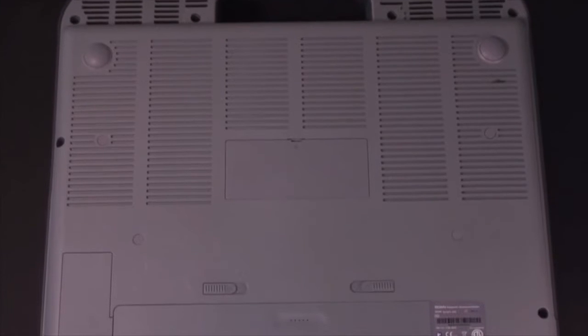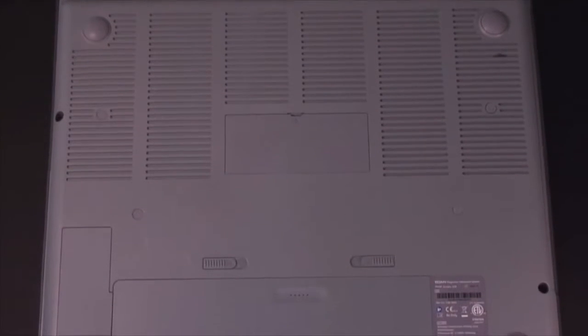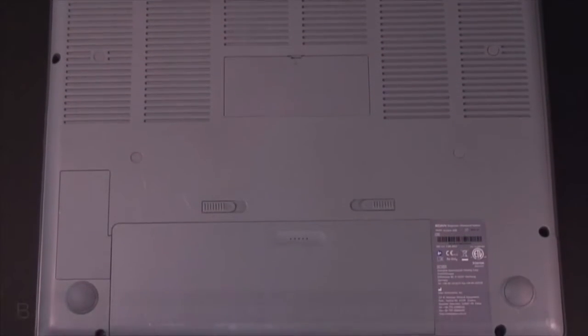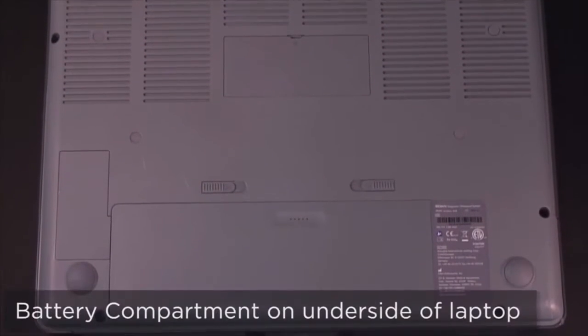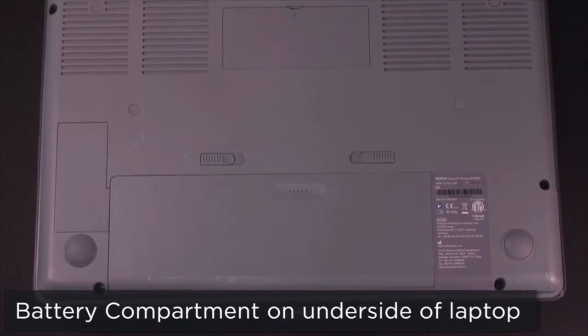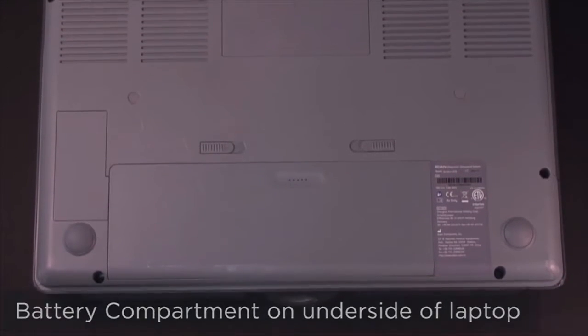The AX8 features battery operation of approximately 60 minutes normal use, allowing you to move easily from room to room for maximum efficiency.